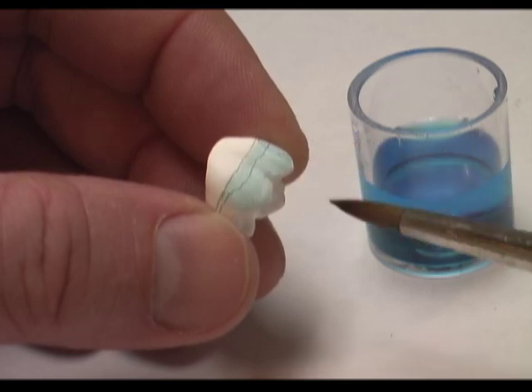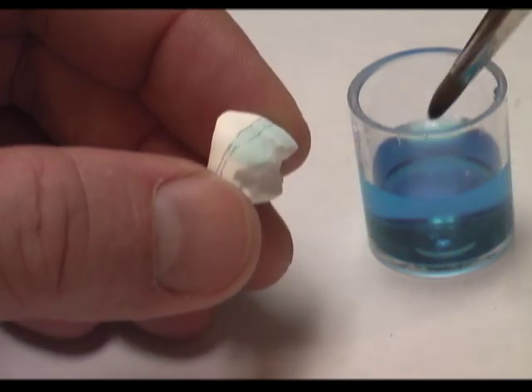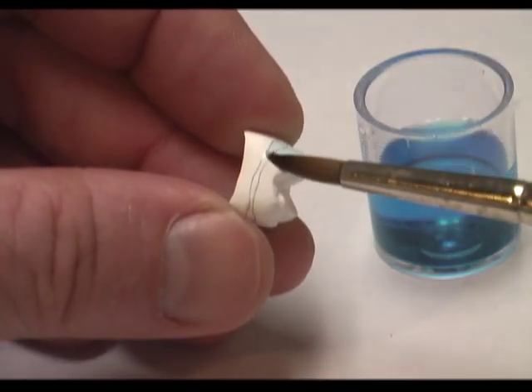It's important to start with the enamel liquids first because the enamel liquids — all liquids, actually — penetrate into the zirconia, and with each additional coat the material becomes more saturated.